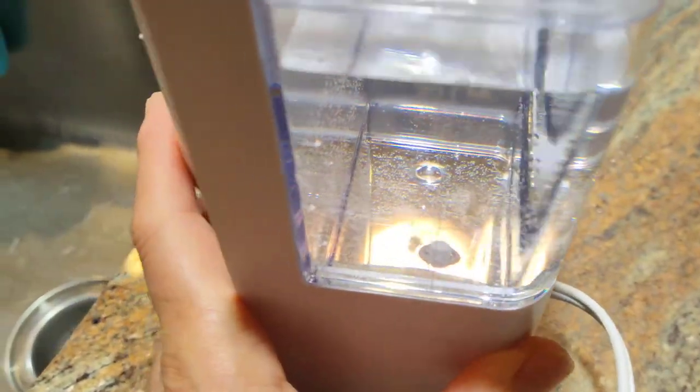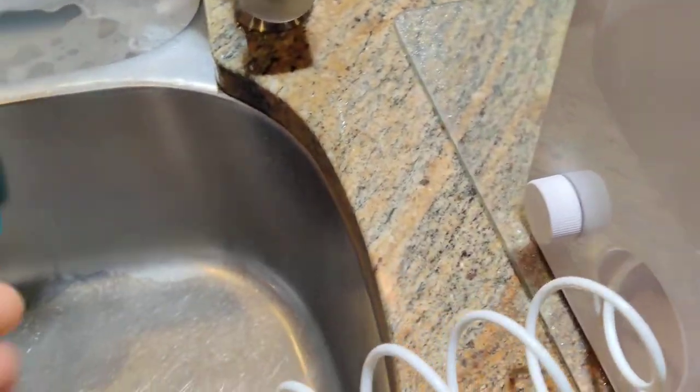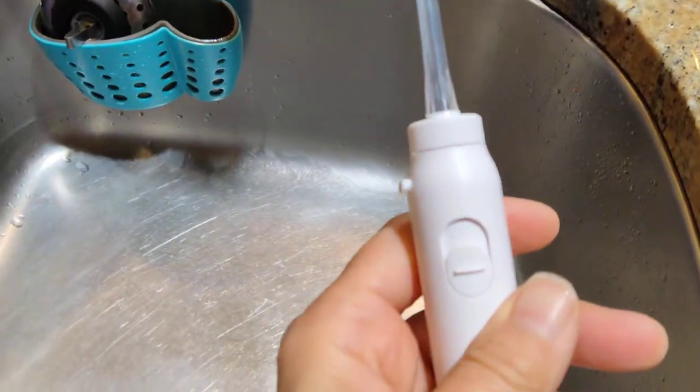I would advise lukewarm water because cold water directly jetting onto your teeth is not a very comfortable thing. I've got it off right now.